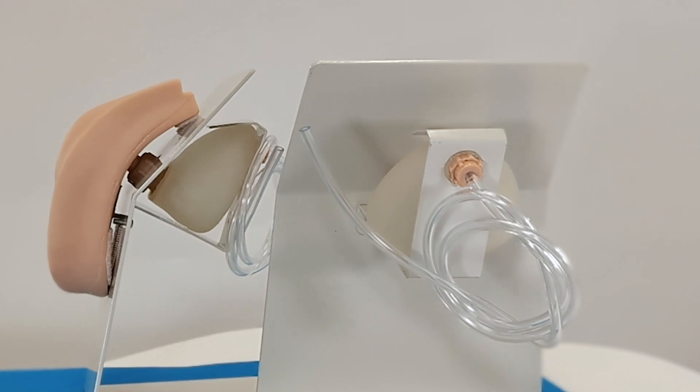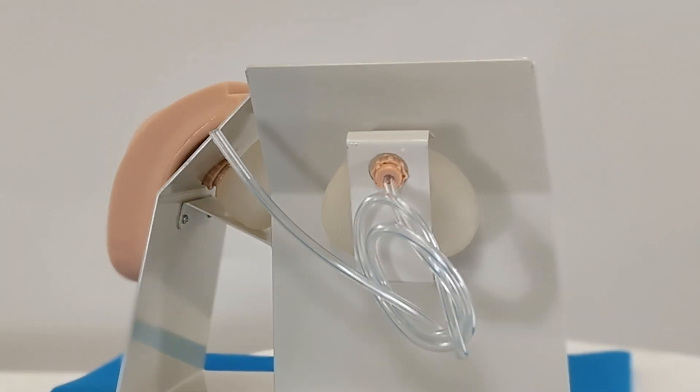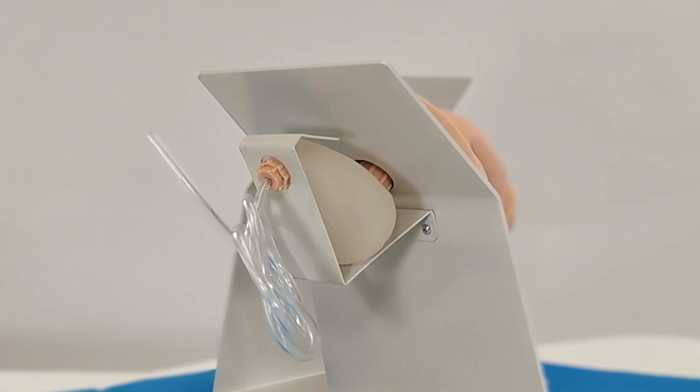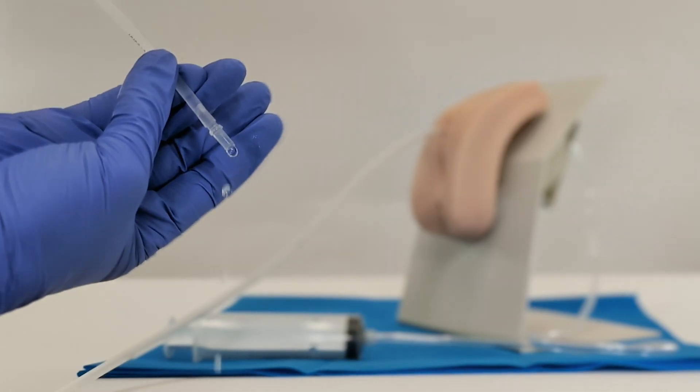Crafted for lifelike clinical training, this simulator includes a fully functional bladder, enabling trainees to collect simulated urine with correct catheter placement.